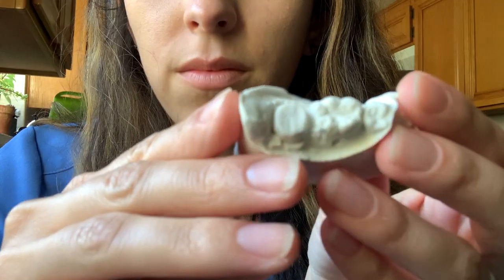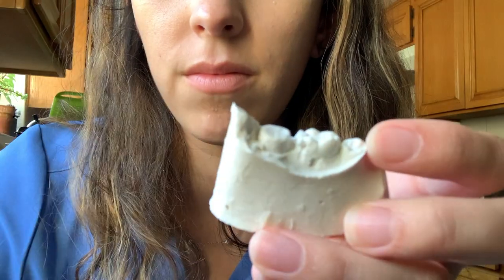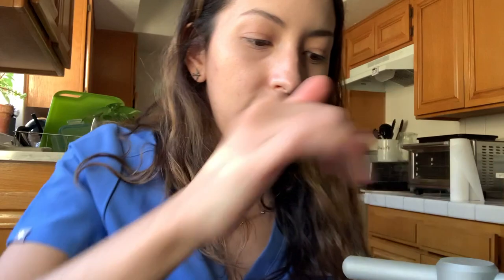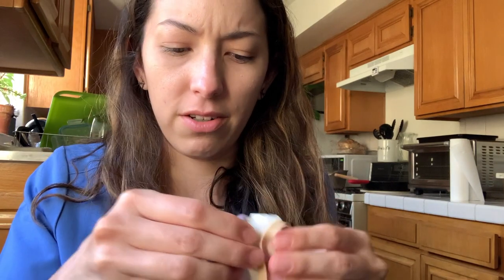This is my pressure pot. I prepped the plaster, then poured acrylic into the purple putty and put it on the plaster to make the shell. Now I'm taking the acrylic and plaster out of the pressure pot — the pressure pot helps the acrylic harden. I'm hoping this works out because I don't really get a second chance unless I go back to school tomorrow, or I can do it Wednesday since I don't need it until Thursday.